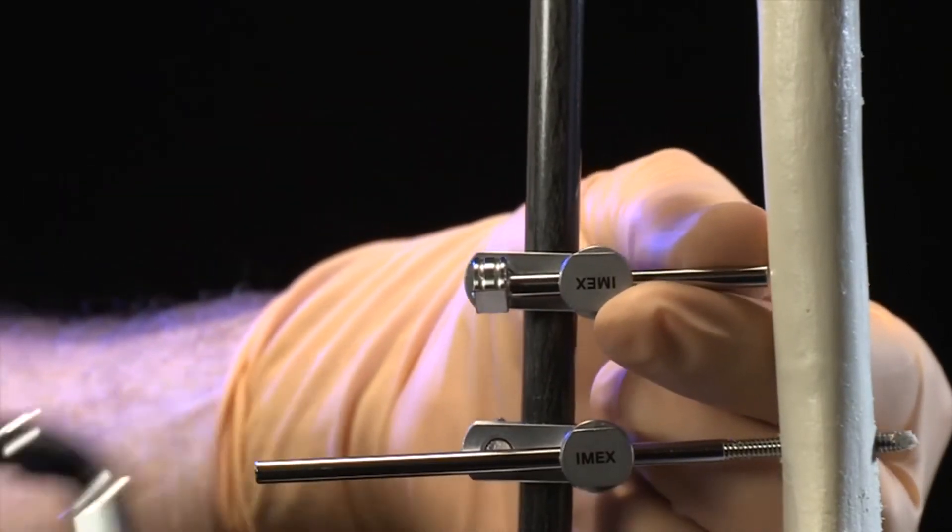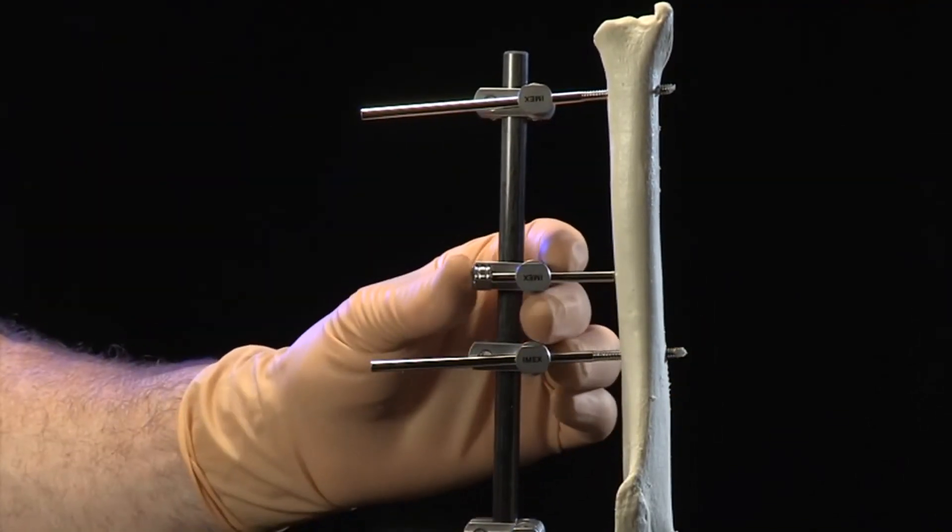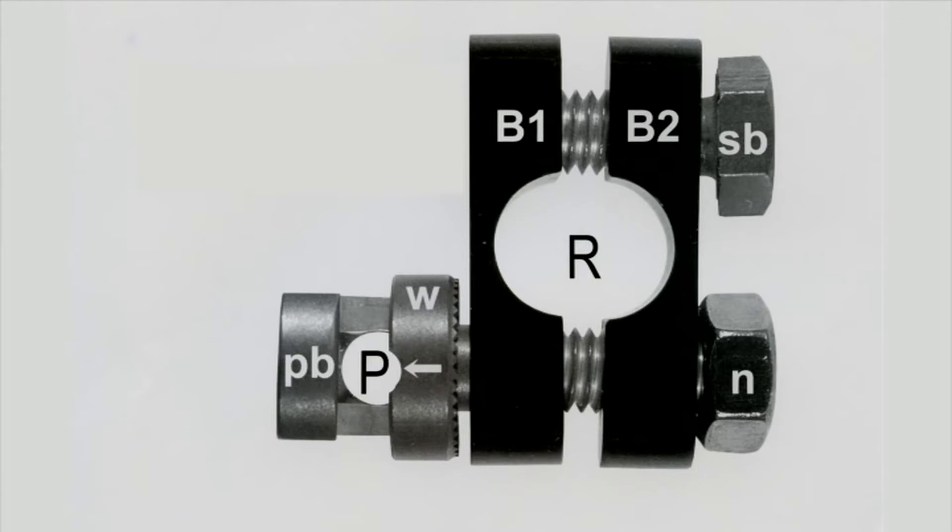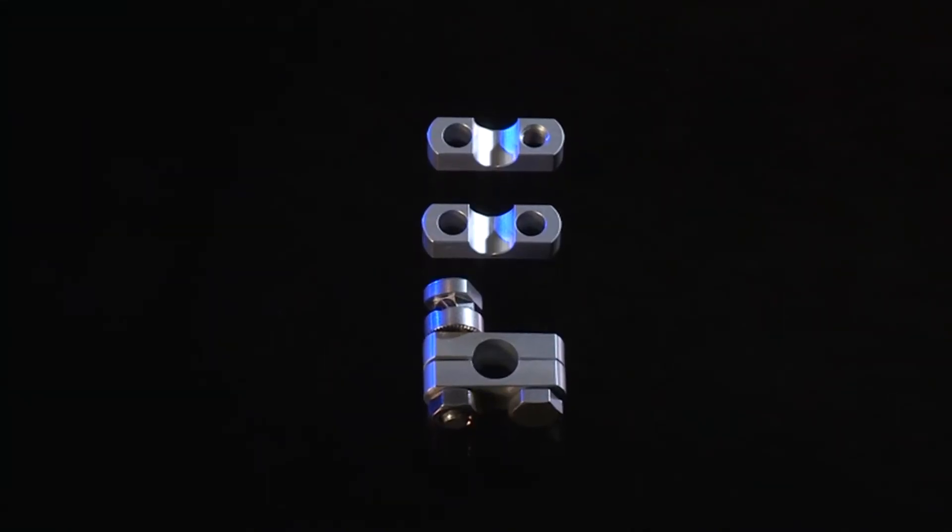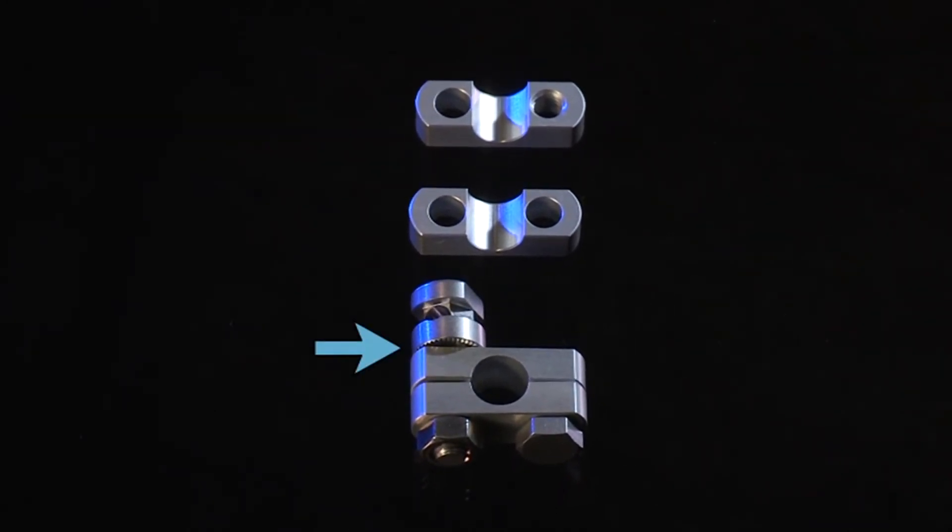The clamp can be temporarily held in position on the external connecting rod by the secondary bolt alone. The clamp is secured in place by symmetrical tightening on the secondary bolt and a nut labeled N on the end of the pin gripping bolt. The slotted washer of the primary bolt has a multi-toothed surface that engages the clamp body as the pin gripping bolt is tightened.